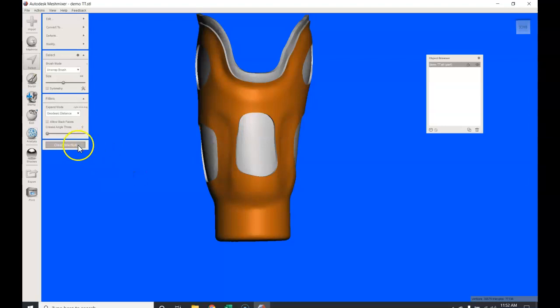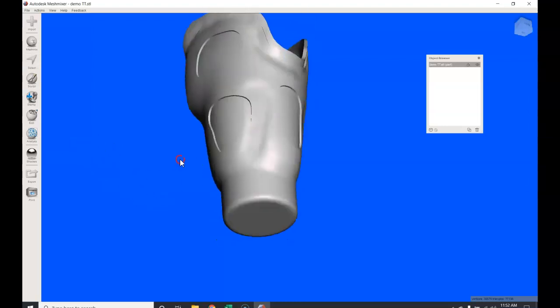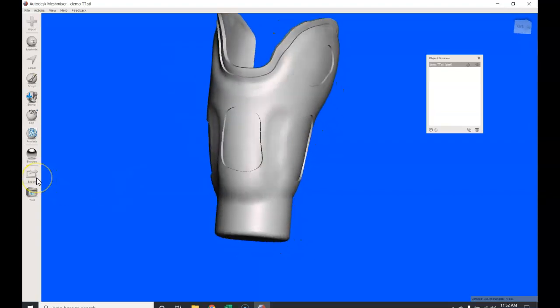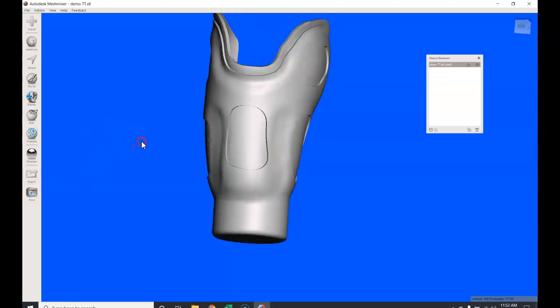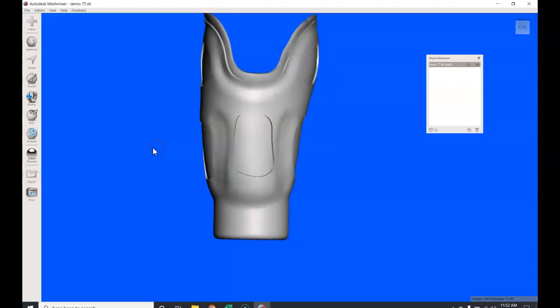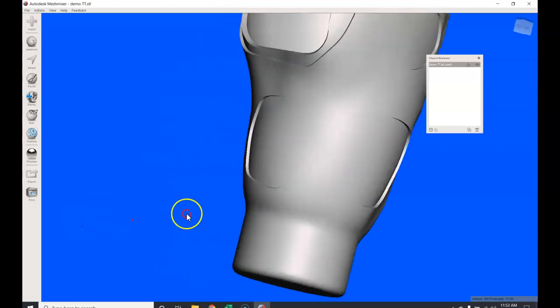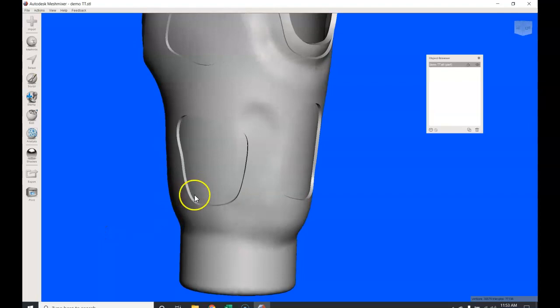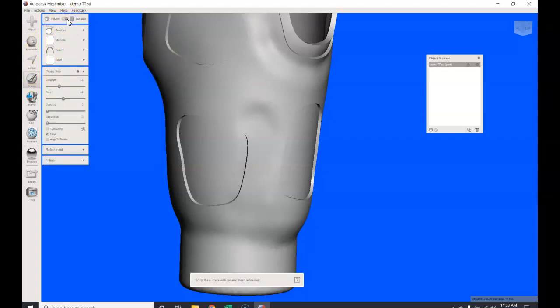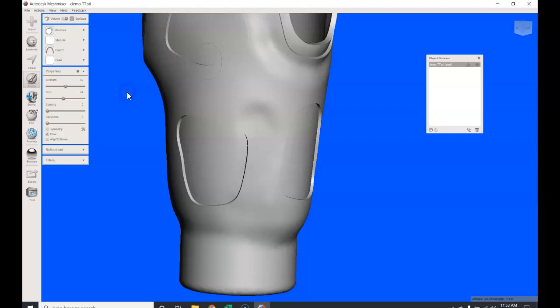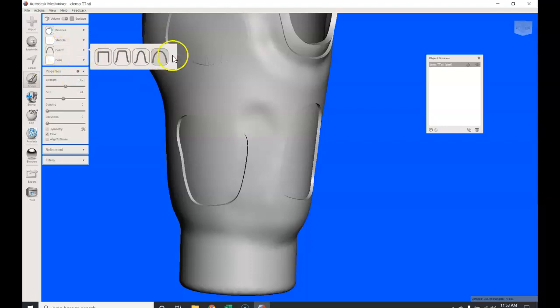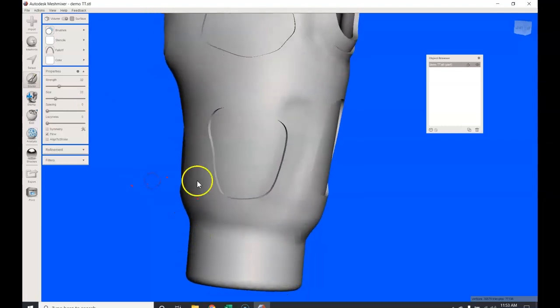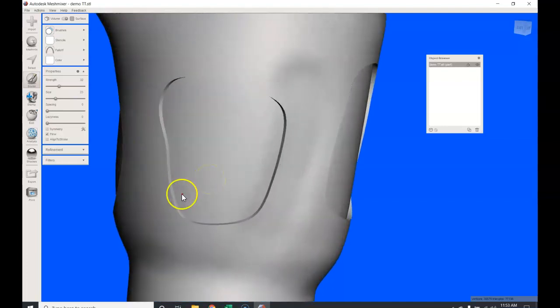Now what I can do is export this file. If you bring it out to export, it'll rename the file and that'll be set to go into my slicer. Just to kind of look at a few things: if you feel like this squared off situation right here is not that great, you can sculpt that. And the way to do it is go to your sculpt tool. I would do a surface sculpt, I would pick a brush that is called your robust smooth, I would do the falloff brush, and then I would do about a 32 strength with a size of about 23 maybe, and then I'd hit enter. And it's going to bring my brush down. So watch what happens when I left click: you can actually smooth that transition right out.